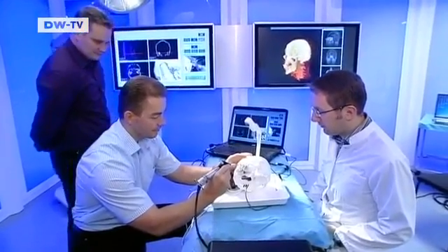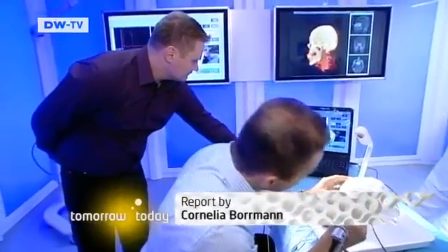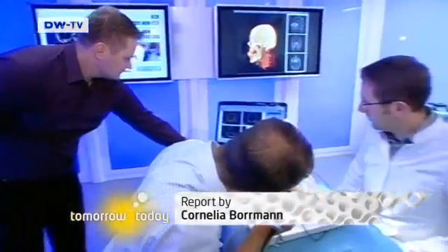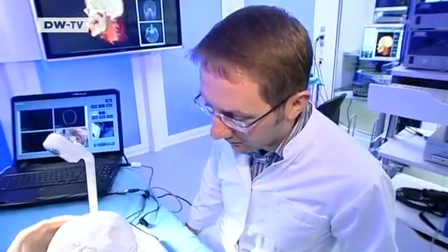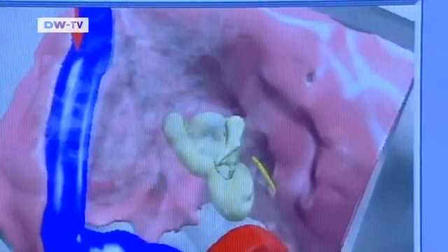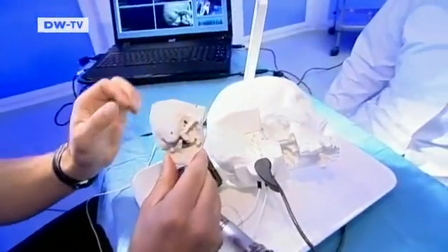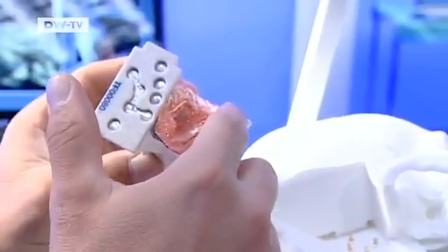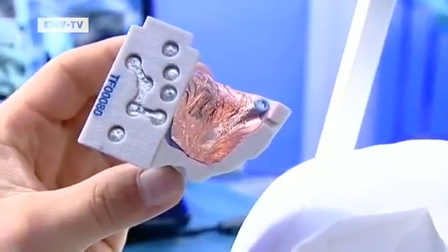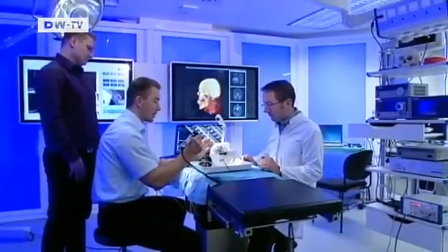A slip of the hand is harmless here. This plaster head is meant to be practised on. It's loaded with electronics and connected to a laptop. If the surgeon injures the wall of the bone or a nerve, the skull speaks up — 'Facial nerve injured.' On the screen, the mistake is clearly visible. Any part that gets injured can be removed and replaced. That gives doctors the opportunity to practise the necessary procedures until they've mastered them perfectly. These training models already exist for surgical procedures involving the nose and ears, and a talking spine is already in the works.